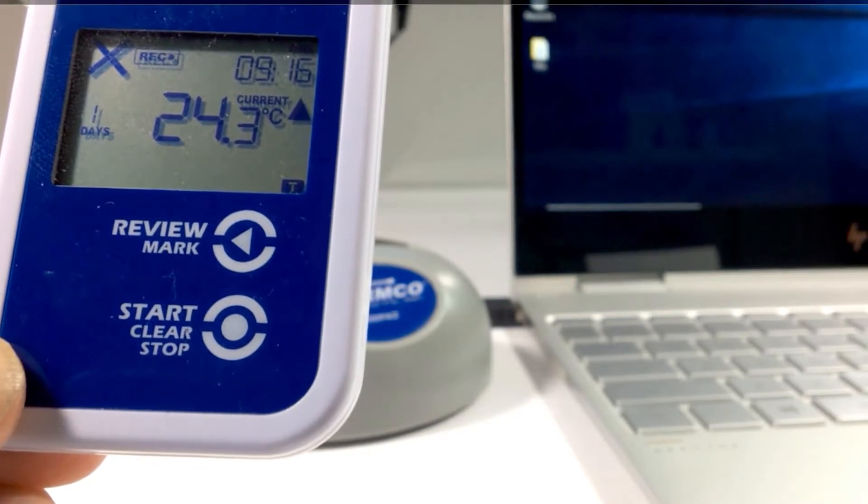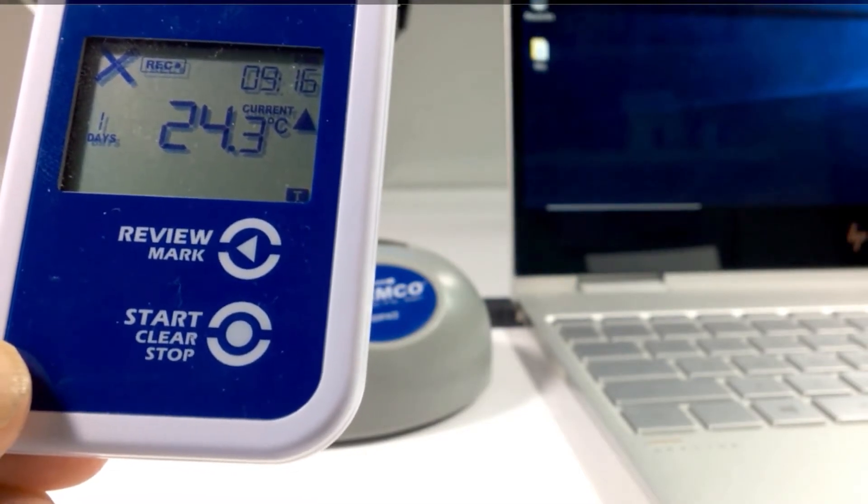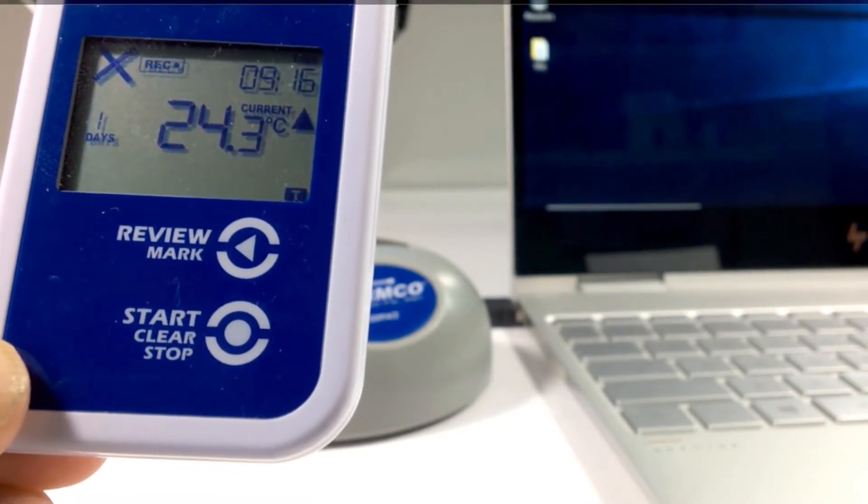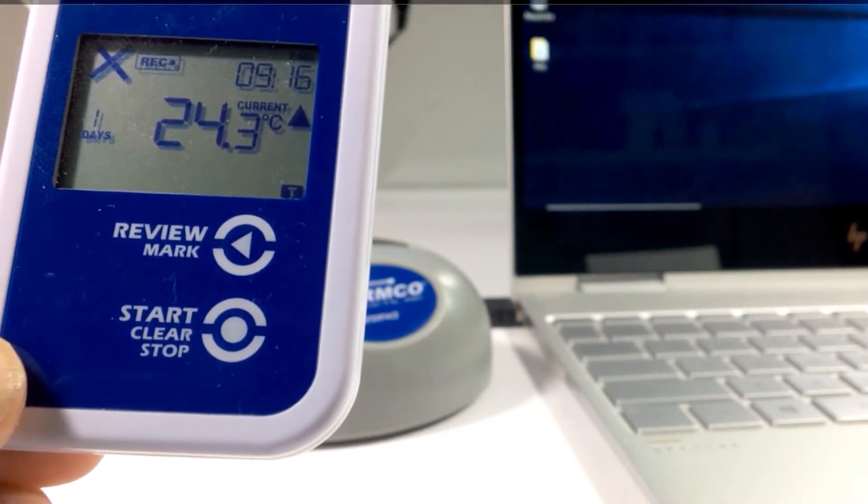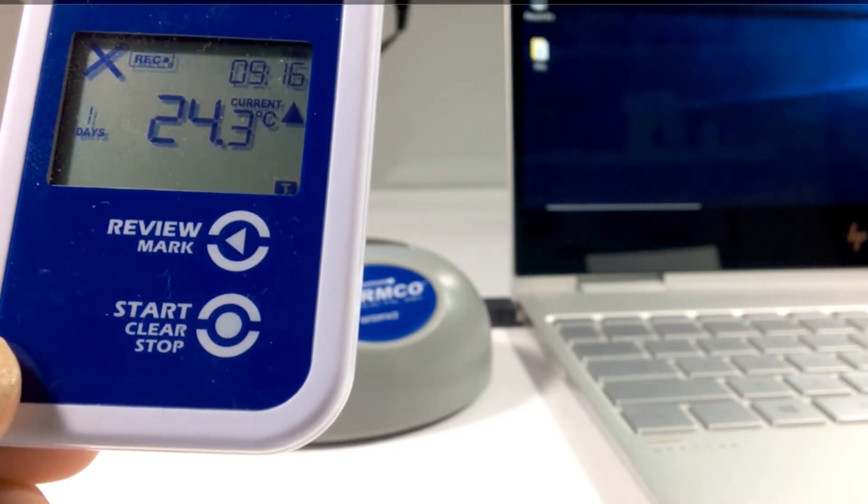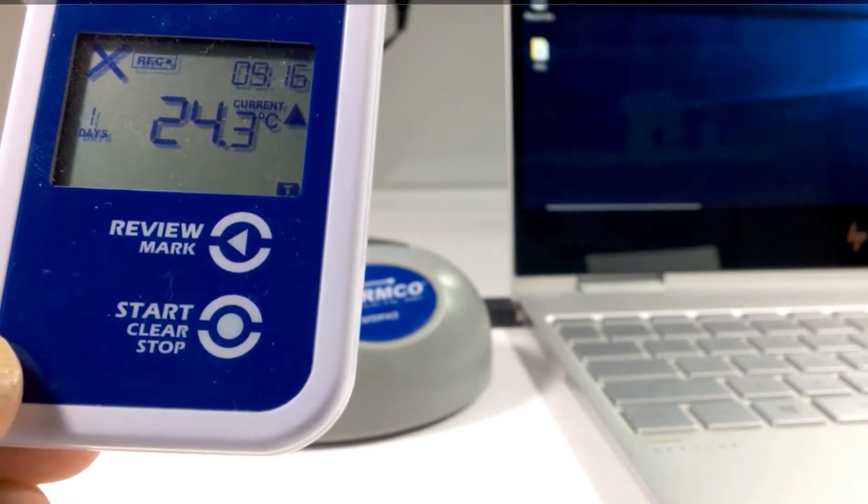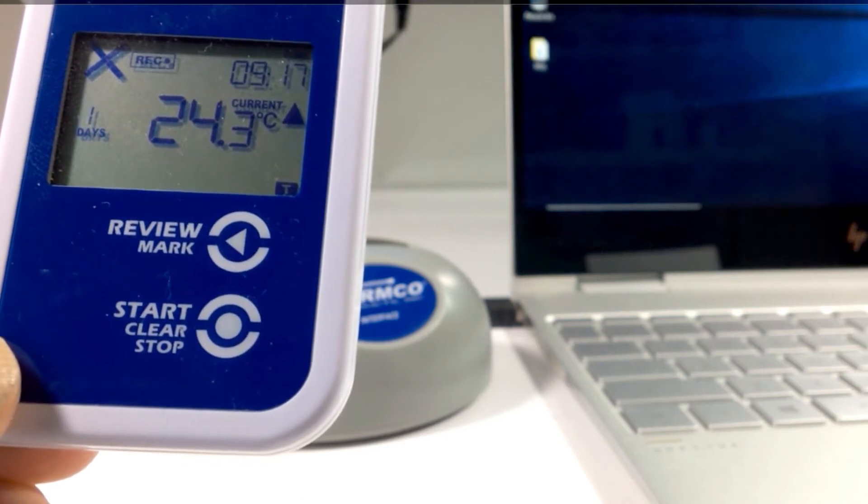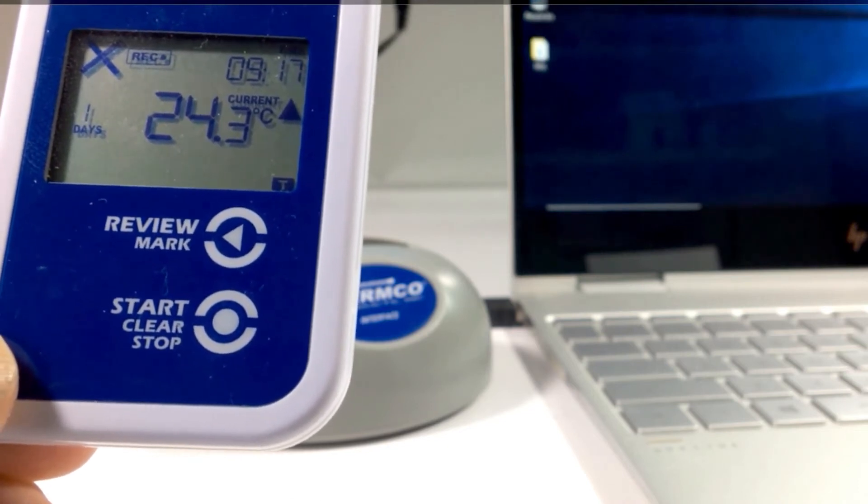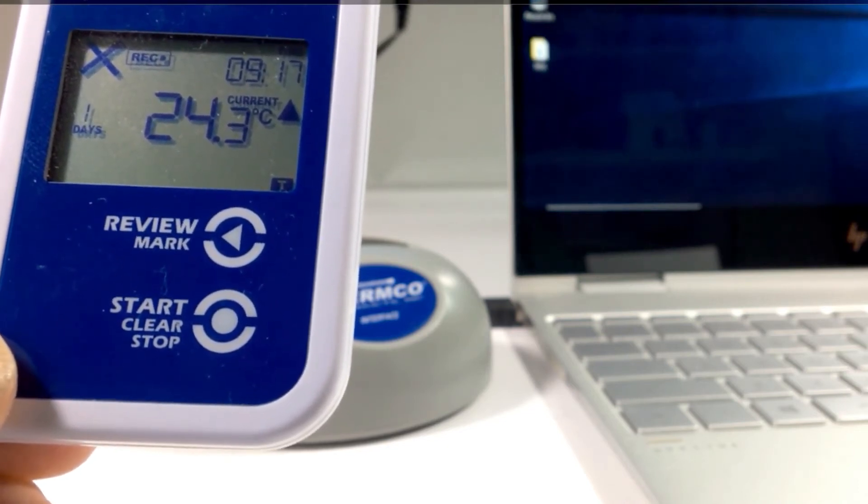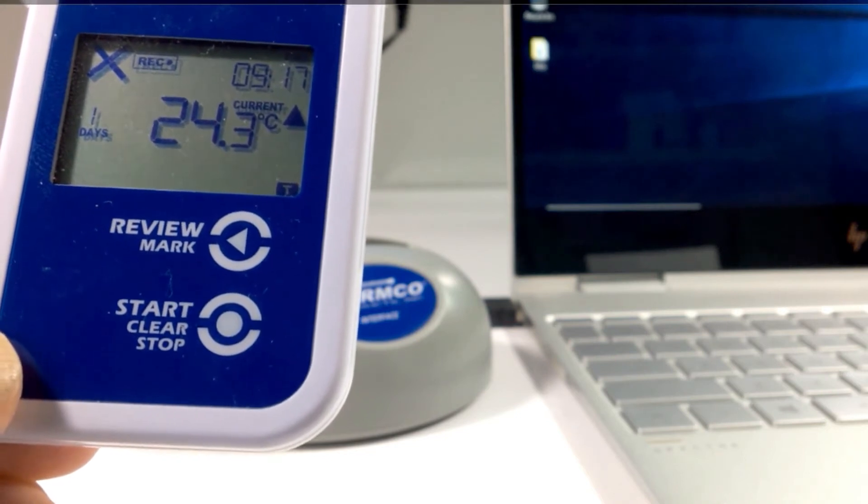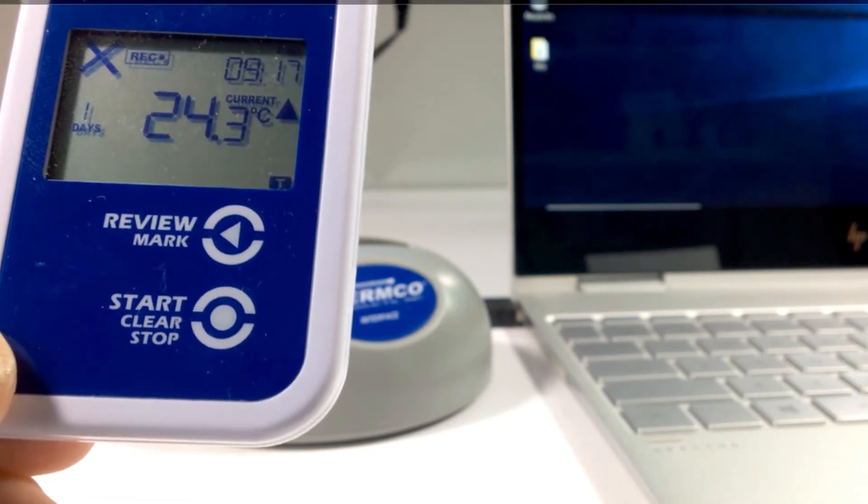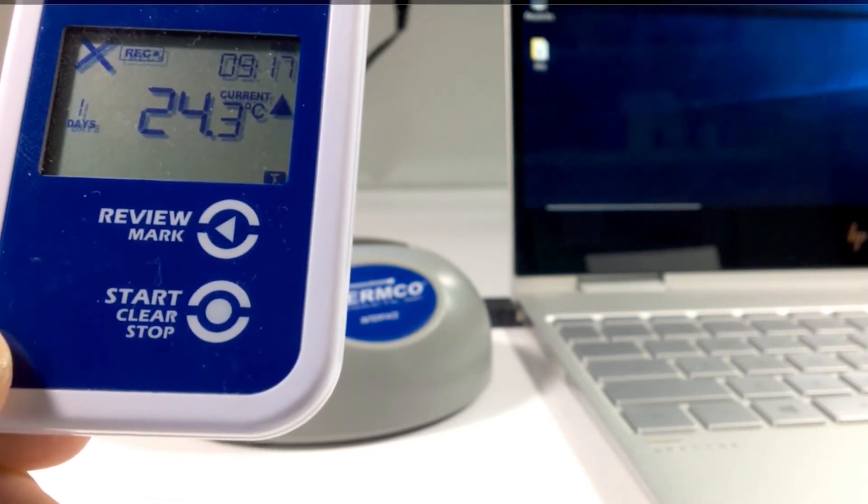We are in an excursion due to the fact that we're monitoring ambient room temperature, which is not within the range of two to eight degrees C. But in your case, if the buffer bottle was to equilibrium in the storage unit, then you would not have an excursion. That concludes our instructional video for the log tag data logger.